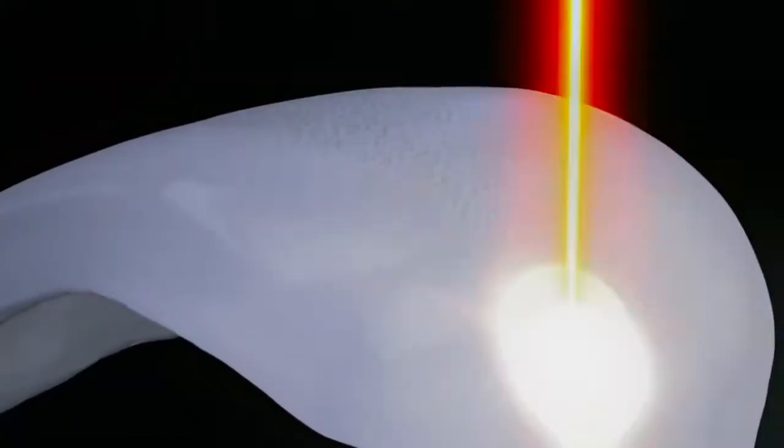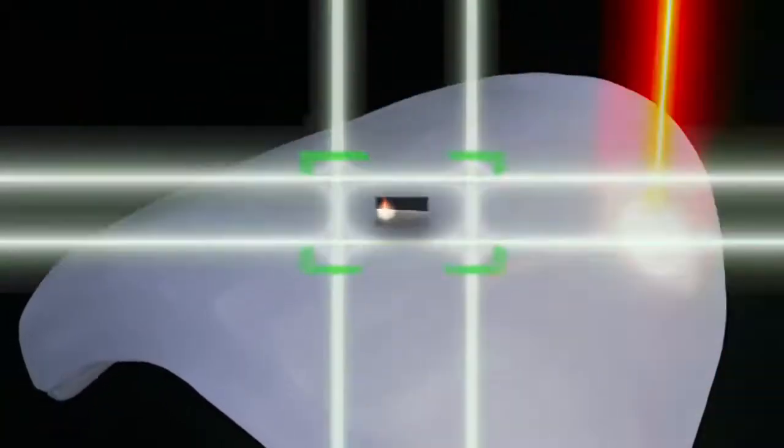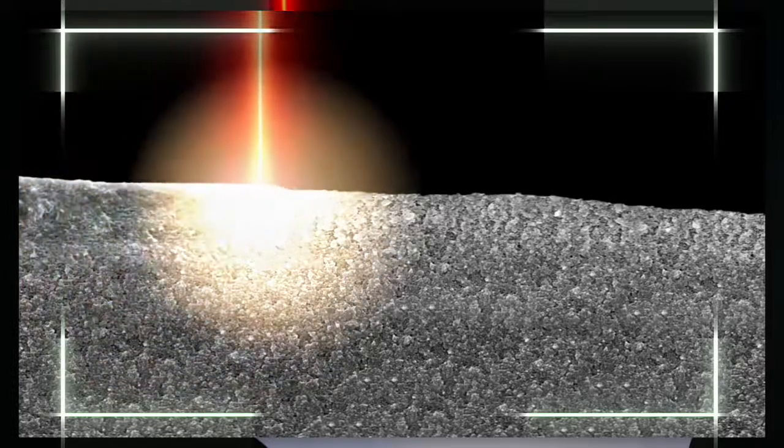Now follows the core of the treatment. A laser penetrates 80 microns into the blank. This sinters the glass particles and extracts the resin parts from the composite material.